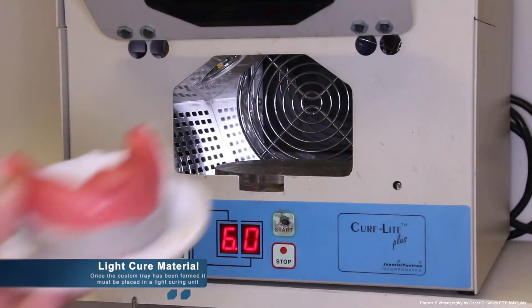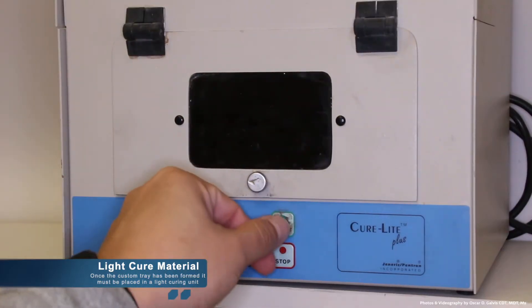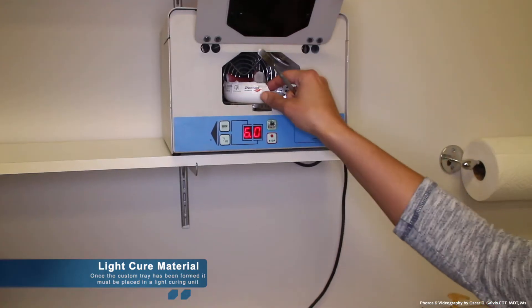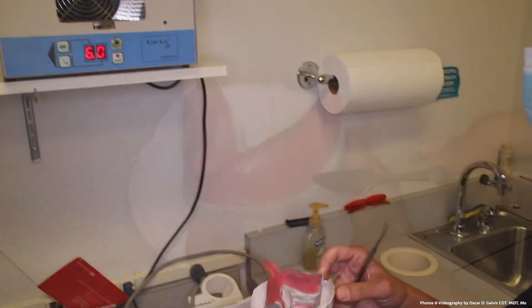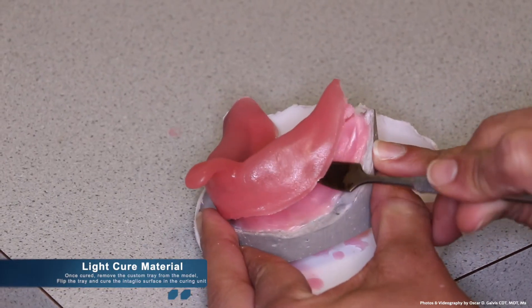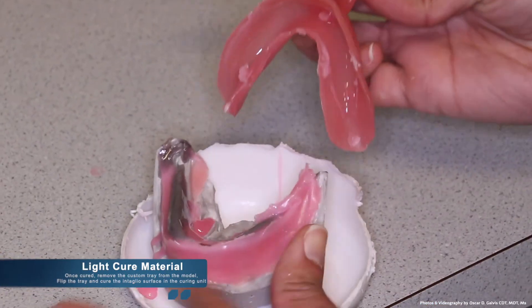When using the light cure material, it must be placed into a light curing unit for the soft material to now become a solid. Once the custom trays have been cured, remove the custom tray from the model. Flip the tray and cure the intaglio surface, or the inside surface, of the custom tray. This will ensure that the tray is cured through and through.